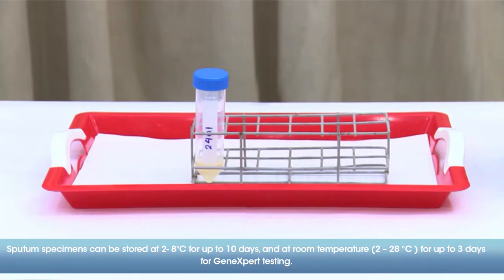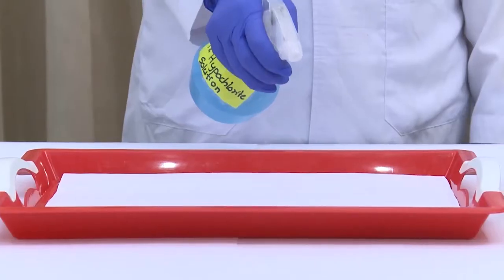Sputum specimens can be stored at 2 to 8 degrees Celsius for up to 10 days, and at room temperature, 2 to 28 degrees Celsius, for up to 3 days for GeneXpert testing.